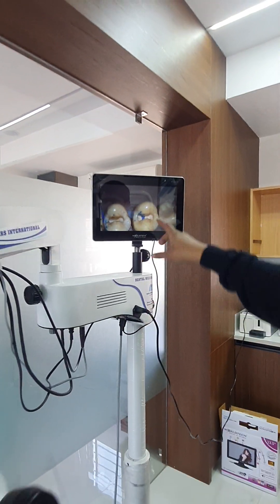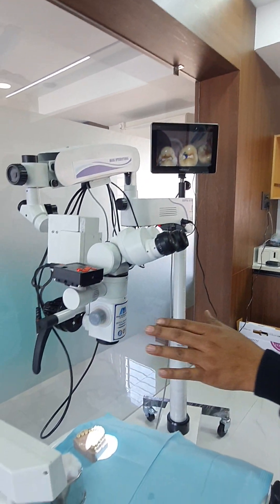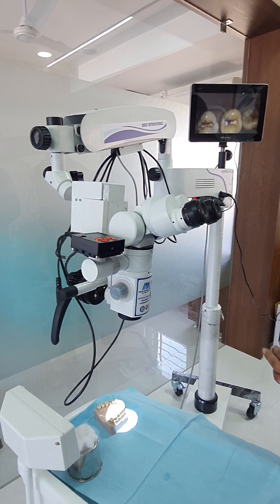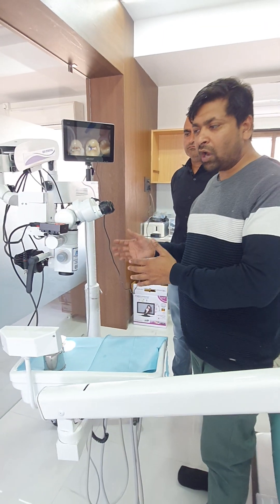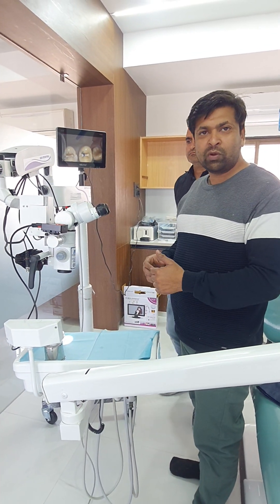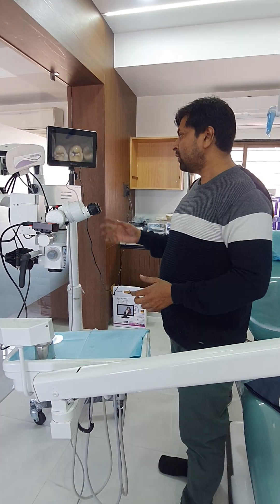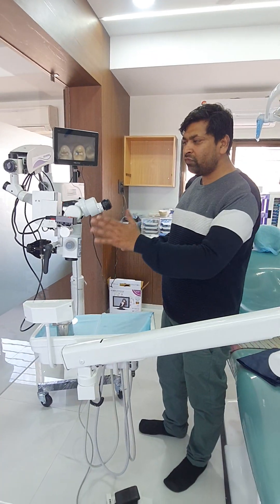You can see the screen — fine focusing — it will be clear. It is an HDMI camera. With this camera, you can record images, and it provides recording and HDMI output, zoom in, zoom out function, screen light, and intensity control. These are all the options of the camera.